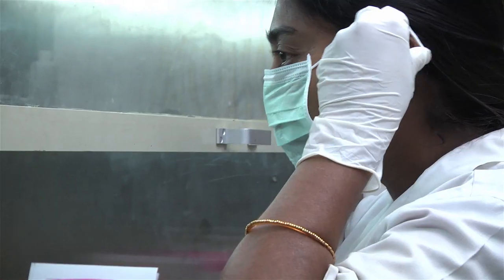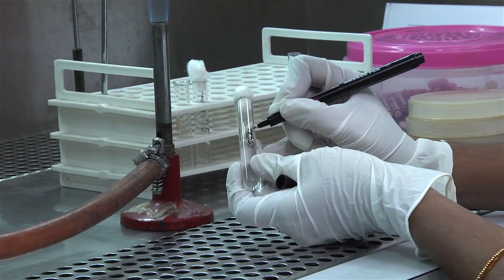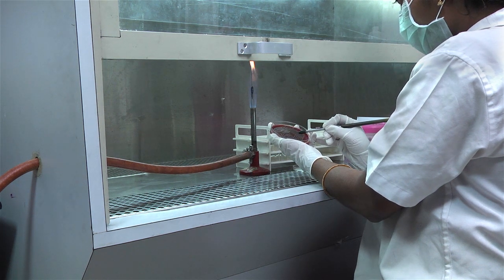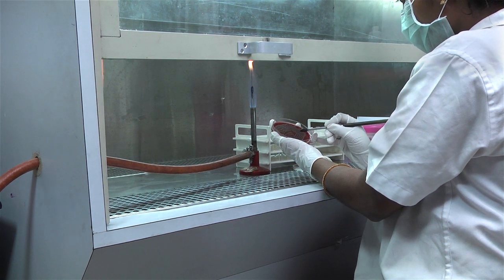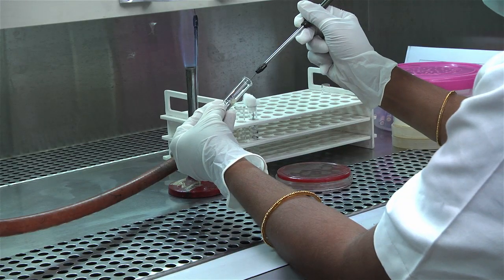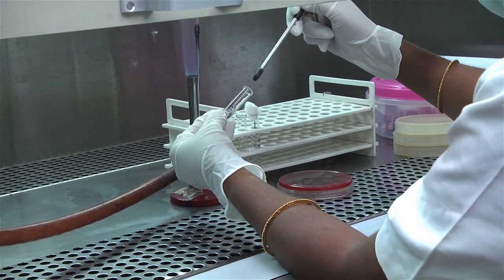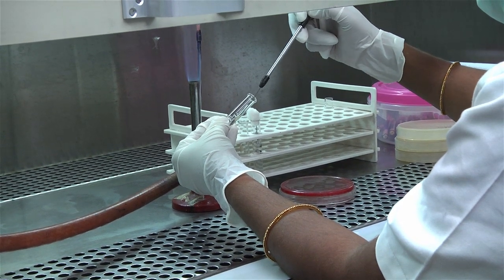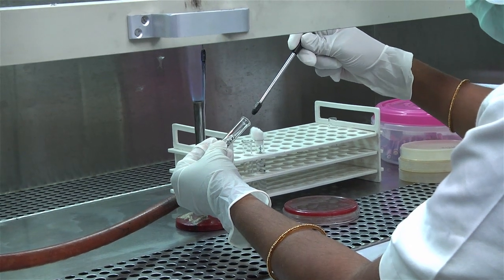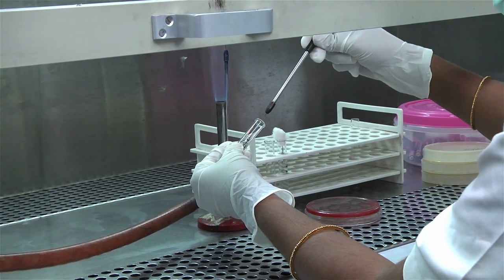Wear personal protective equipment. Label the test tube of nutrient broth in which the colonies are to be inoculated. Using a sterile wire loop, touch 3 to 5 well-isolated colonies of similar appearance to the test organism and emulsify in 3 to 4 milliliters of sterile physiological saline or nutrient broth. Culture grown from a specimen can give a mixture of colonies representative of different bacteria. Care should be taken to pick only one type of colony.